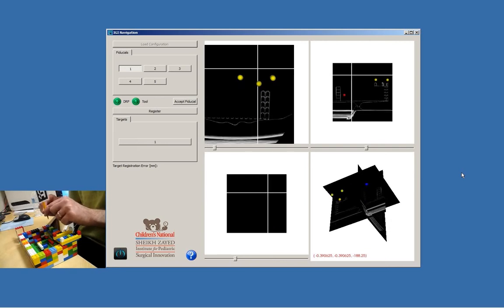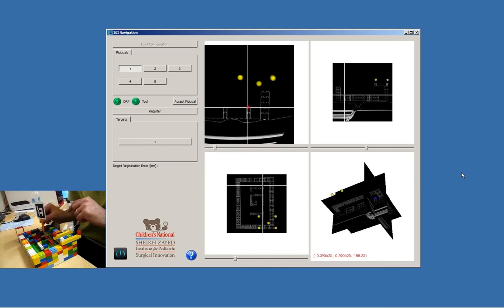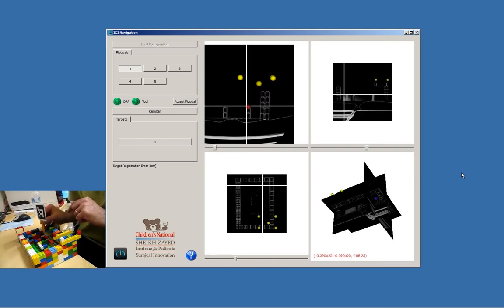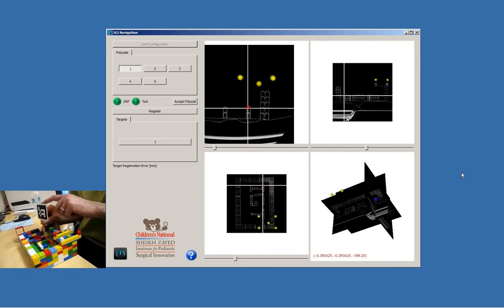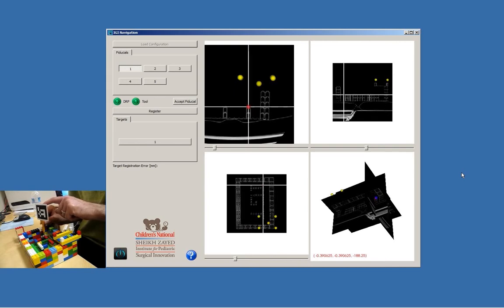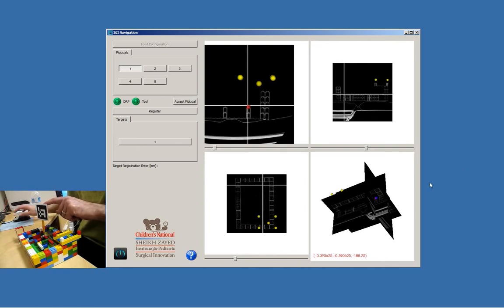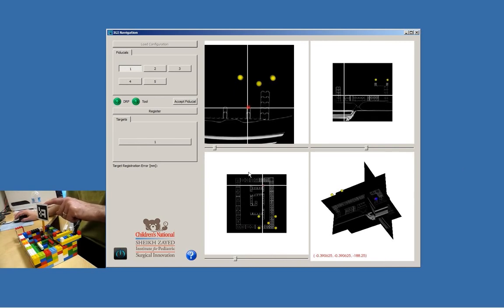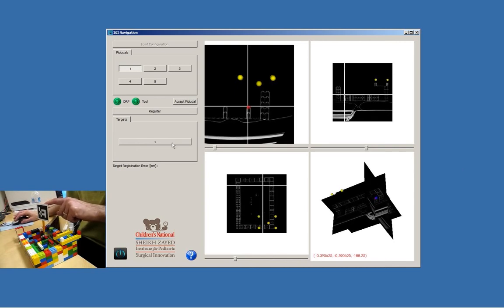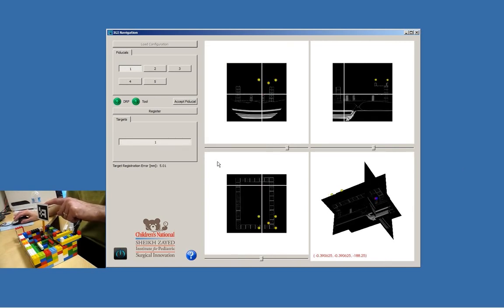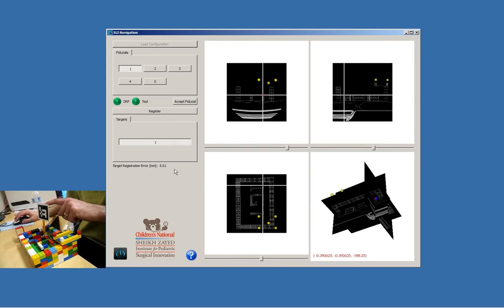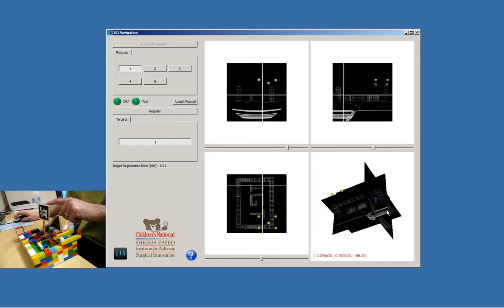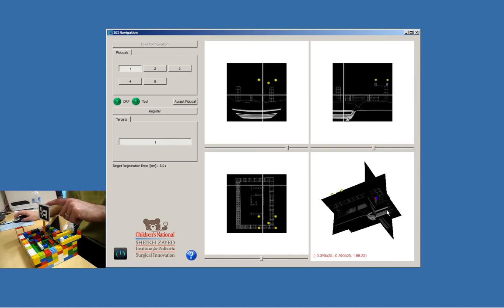Now we're interested in our target registration error. We chose as our target the tip of the eye in the IGT phantom, and as you can see there is an overlap between the red sphere and the blue sphere. The distance between them is about five millimeters, which is reasonable for this type of setup using a webcam as a tracking system and a pencil as a pointer device.